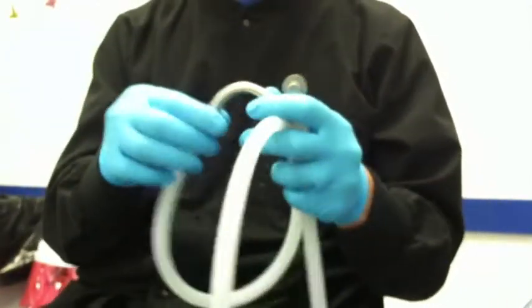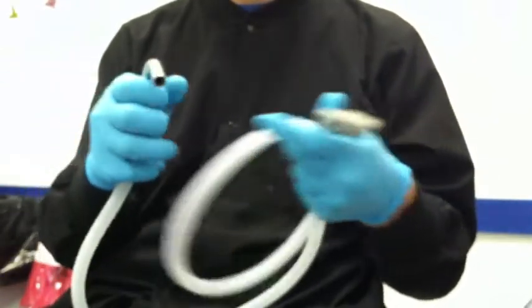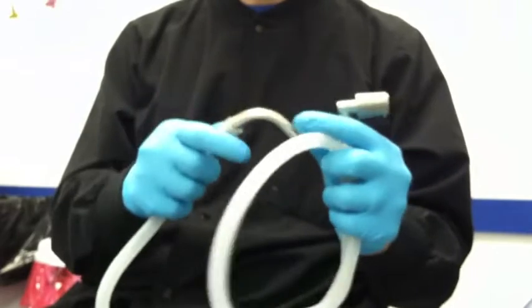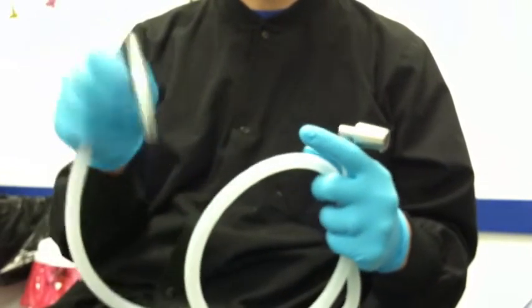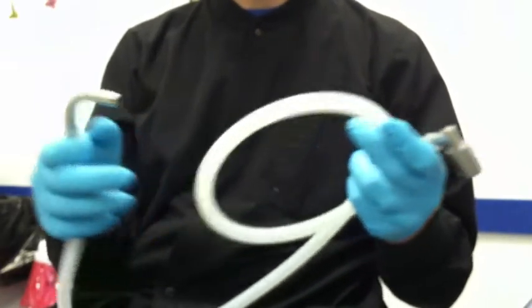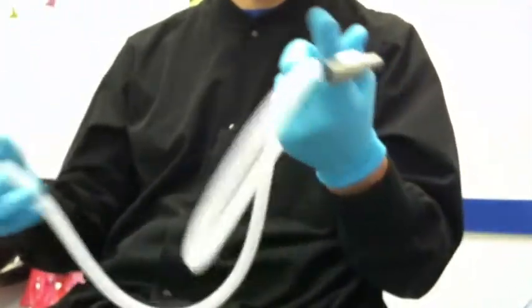This is the new Kona tube kit. It's attached to the Kona adapter. It consists of the stainless steel 90 degree tubing that attaches to the HVE valve. The tubing itself is going to come in — this particular prototype is just four feet, but it's going to come in five feet.